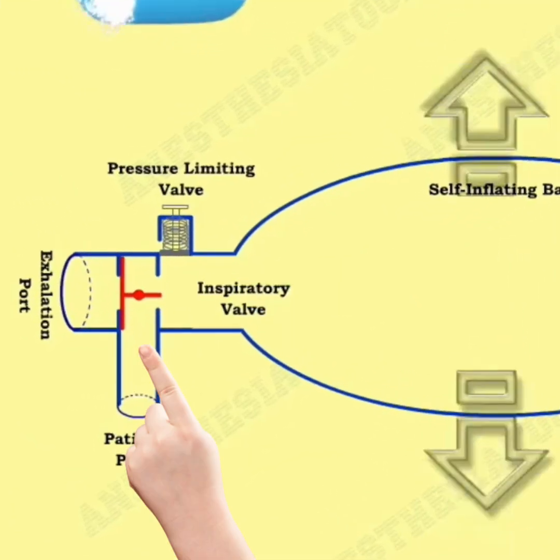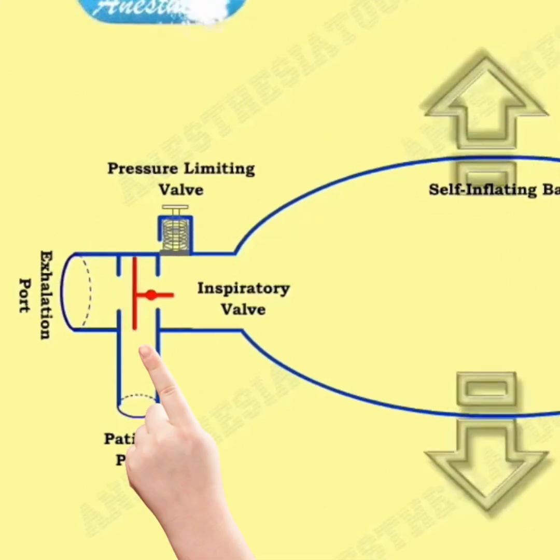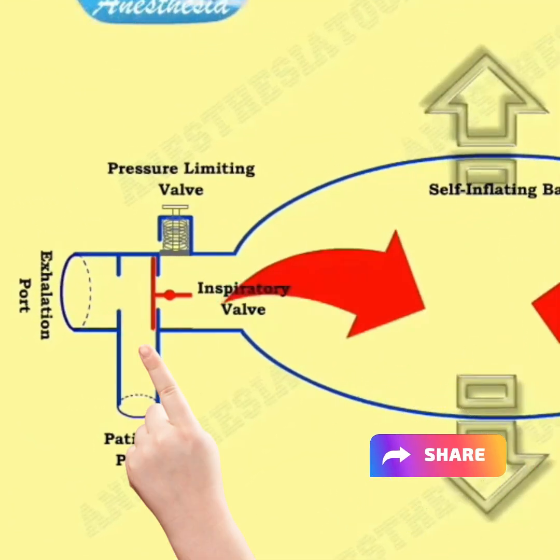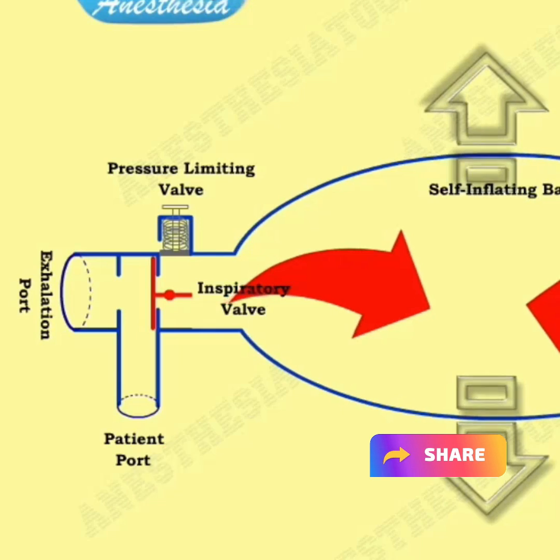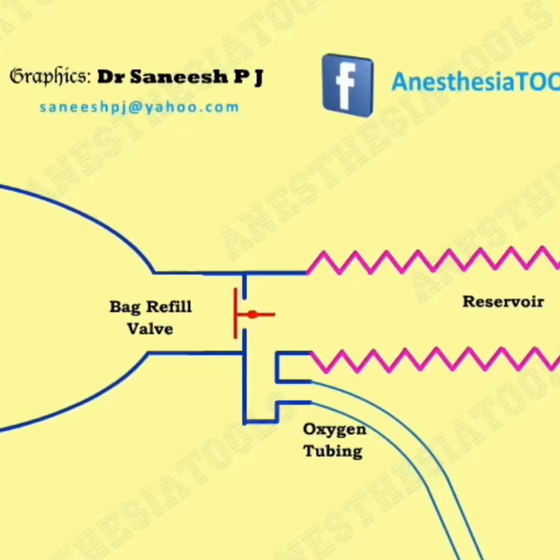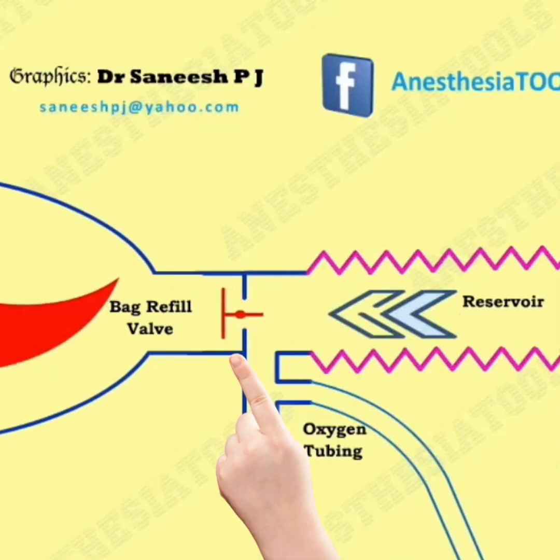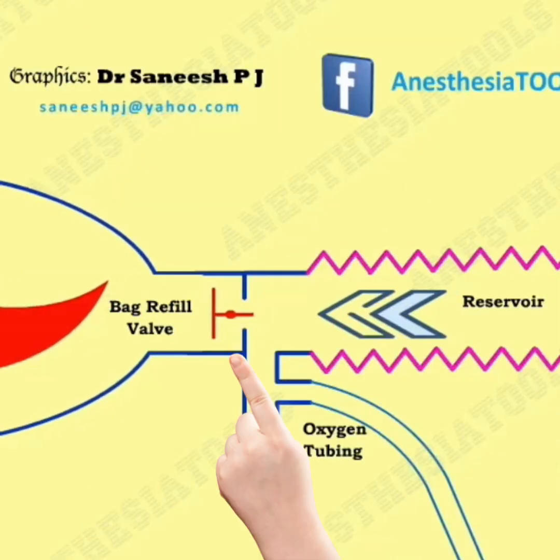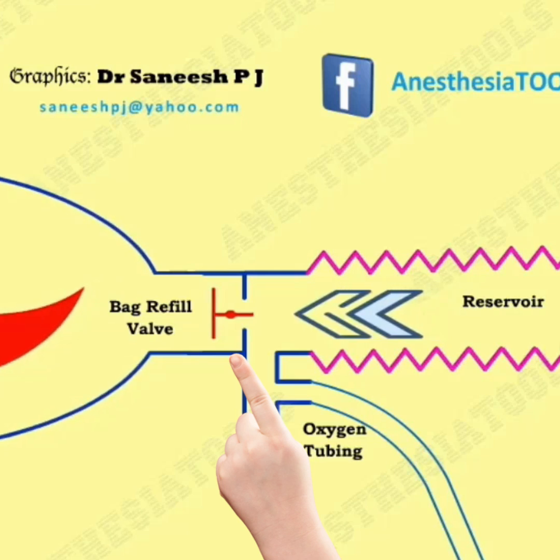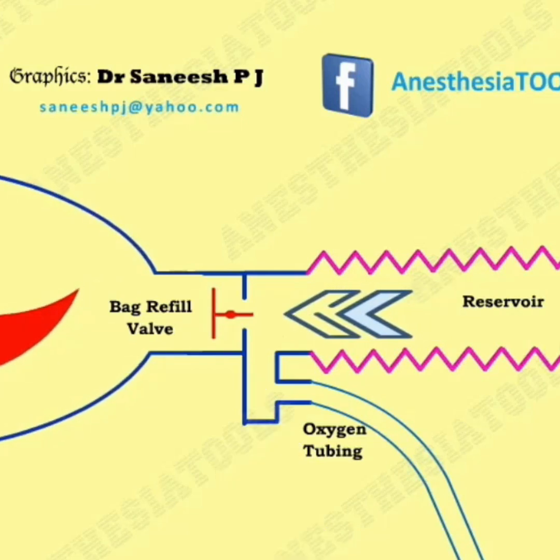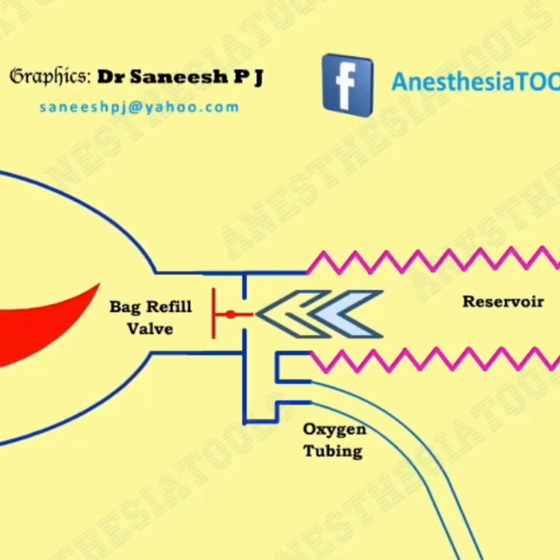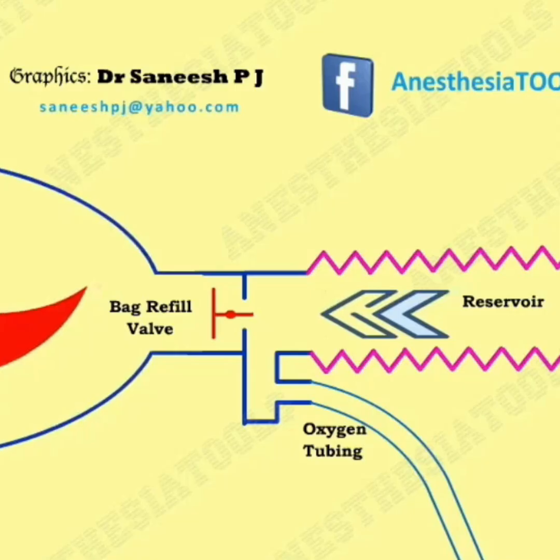Now you can see when the self-inflating bag re-expands, due to the negative pressure the inspiratory valve gets closed and the bag refill valve opens, allowing the flow of gases inside the self-inflating bag.